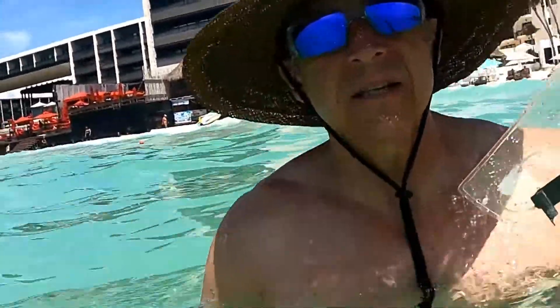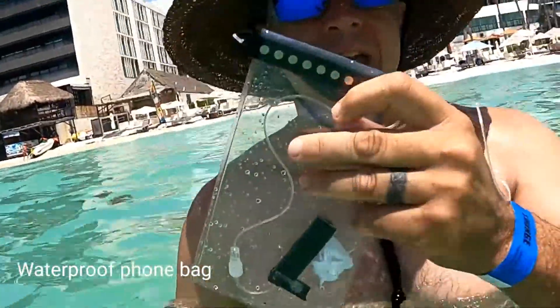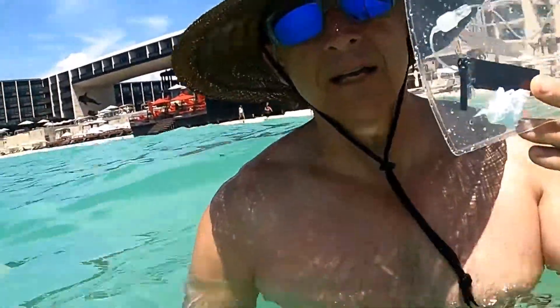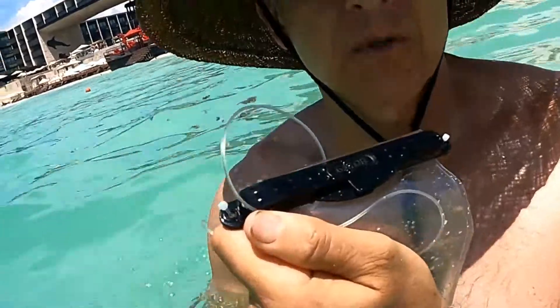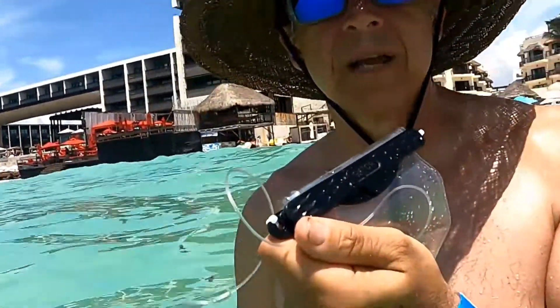So what I did was, as a test, I just grabbed an off-the-shelf cell phone waterproof case. And as an experiment, I ran the infusion set cartridge with the line and a piece of toilet paper to indicate if wetness is going to occur. I just ran it through the bag as an inexpensive option to other waterproof bags possibly built for insulin pumps.